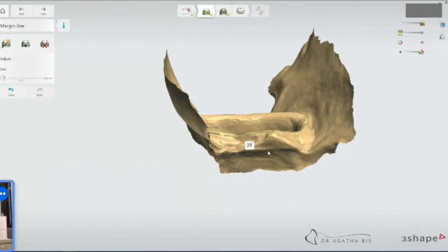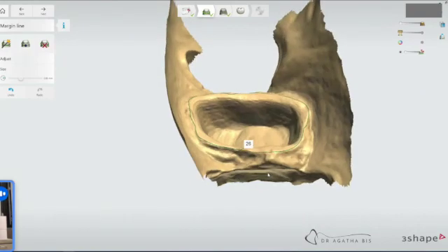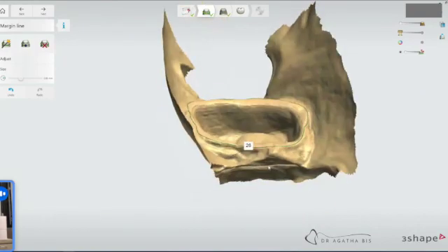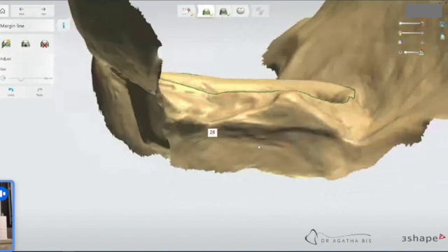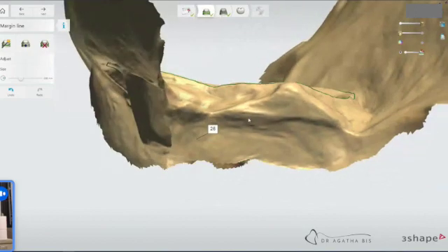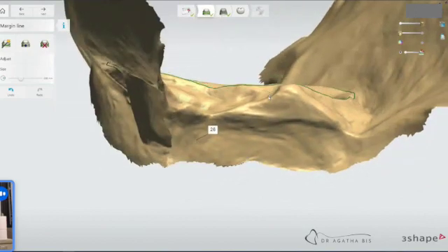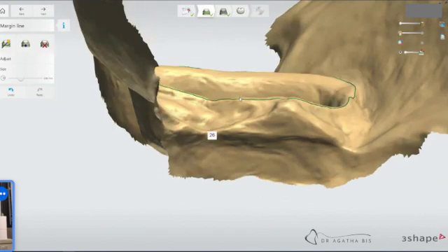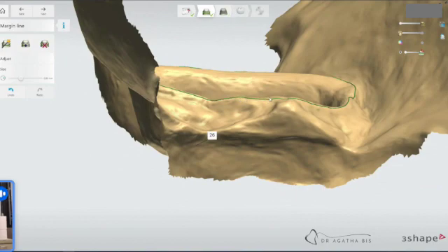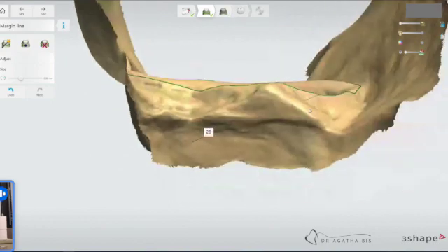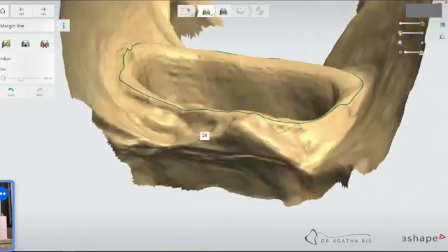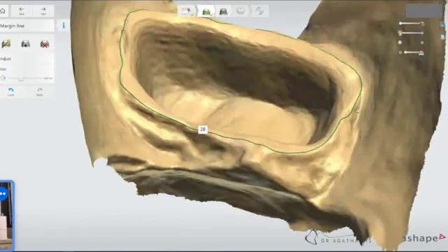So we're going to look for the peaks. Zoom in and then you're really just looking for the highest part of that area and bring it right up. That's your margin line, essentially, because it's going to be at the highest peak.